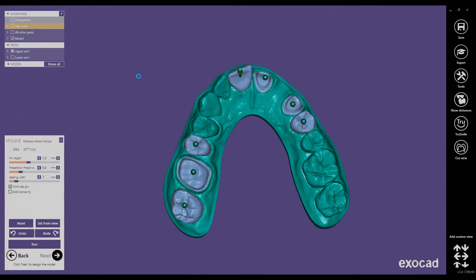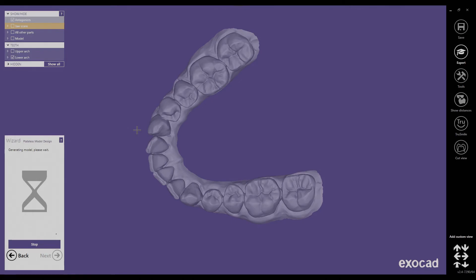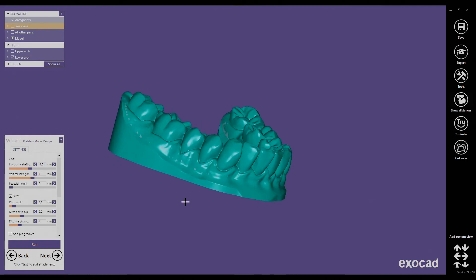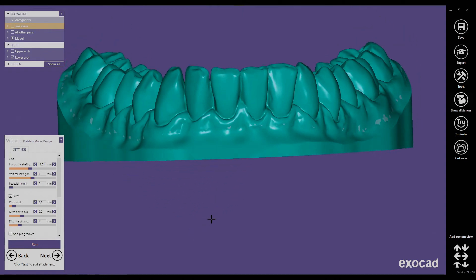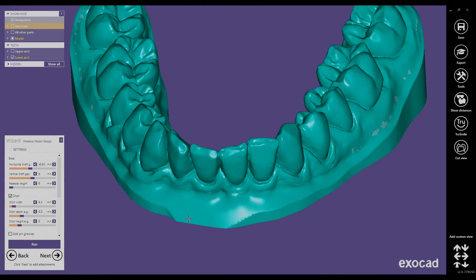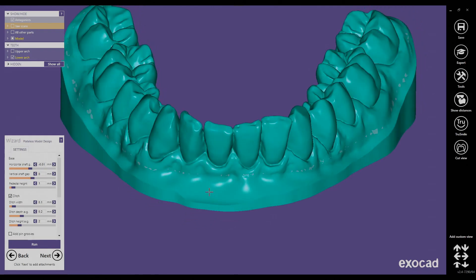Now we are designing the lower jaw. We do not need to change anything on the settings because this is the preset. Here we are with the lower jaw model. There is a small issue — we don't want sharp edges on our models because we are going to print them directly on the build platform for the best accuracy. To get rid of the sharp edge we can just increase the pedestal height and rerun. Now we have gotten rid of the sharp edge.